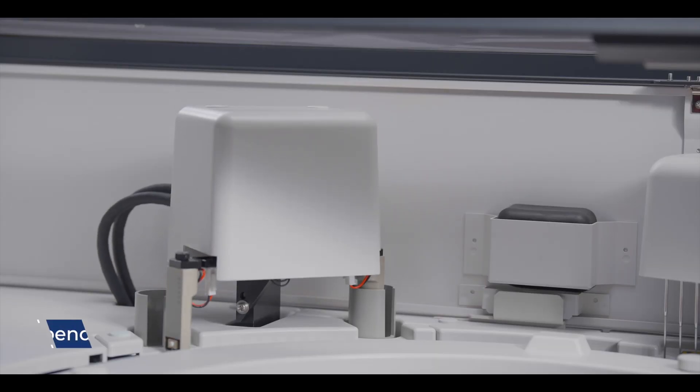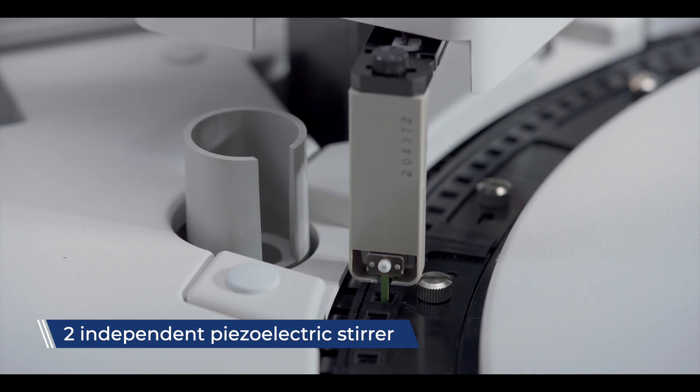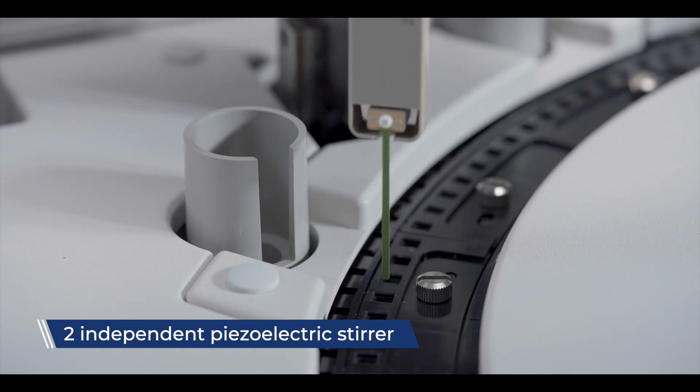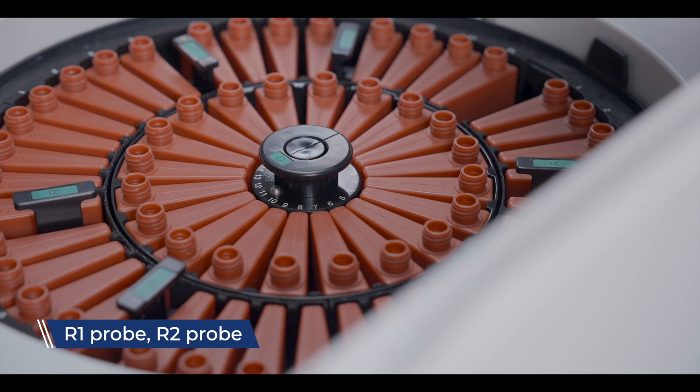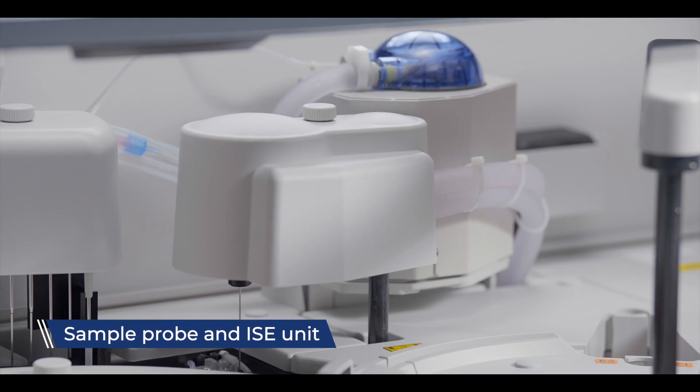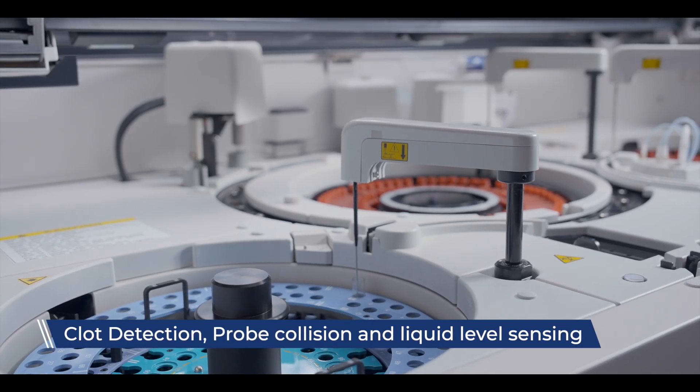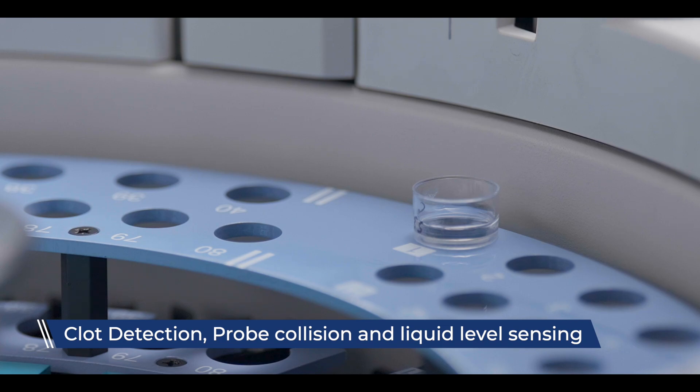The mixing process is optimized by two independent piezoelectric stirrers, ensuring uniform and efficient mixing. The TBA-120FR is equipped with distinct probes for R1, R2, sample and ISE unit, featuring capabilities for clot detection, probe collision prevention and liquid level sensing.